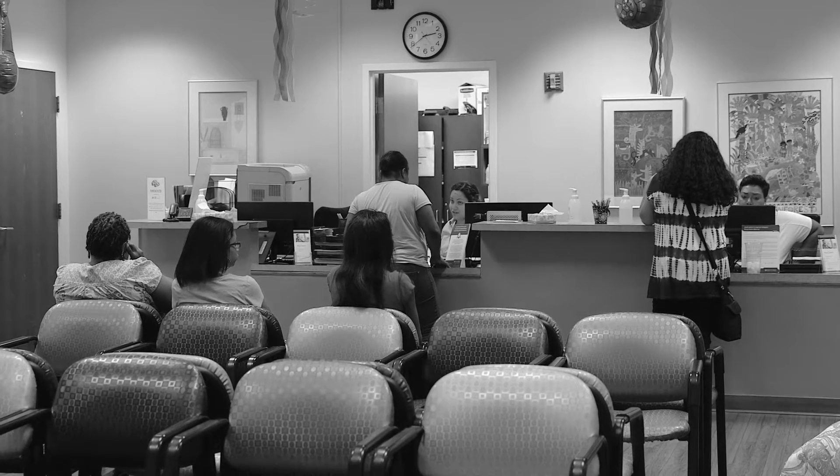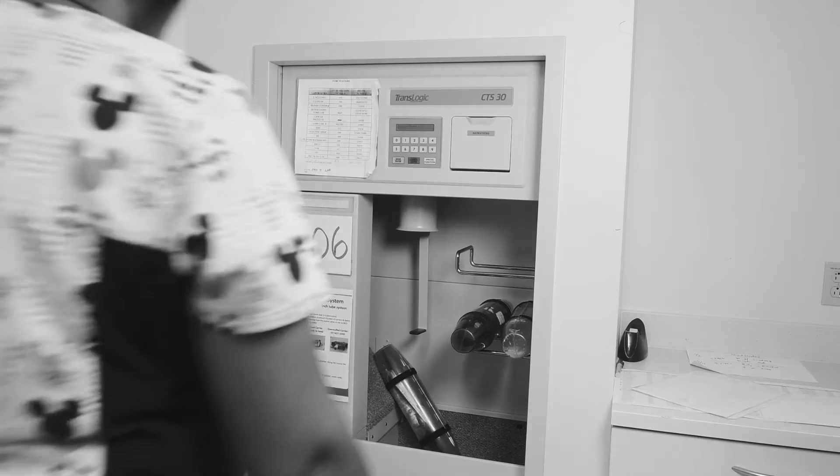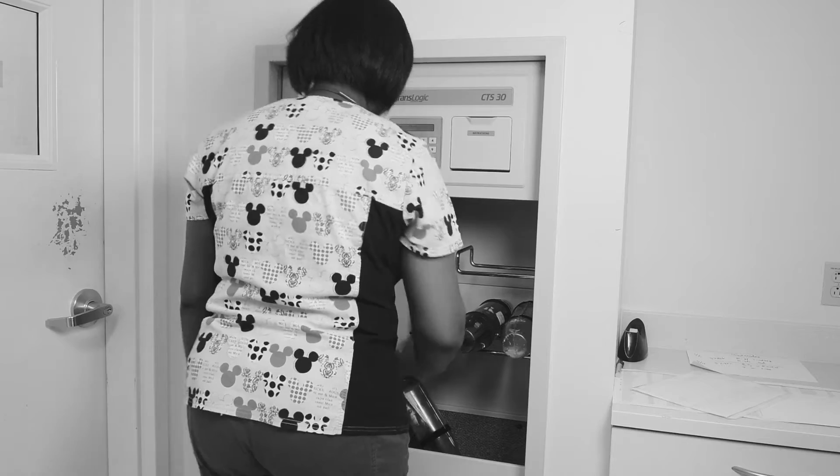The physicians do depend on our lab results in order for them to be able to treat a patient.